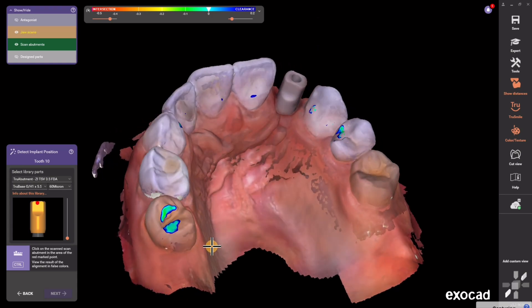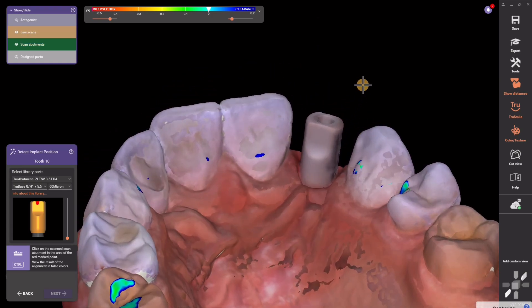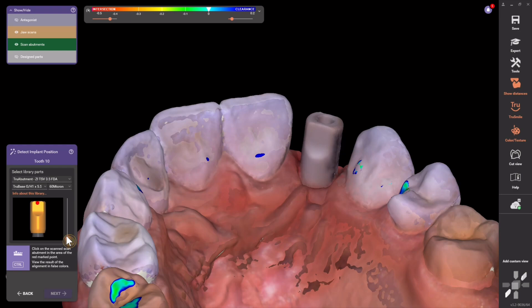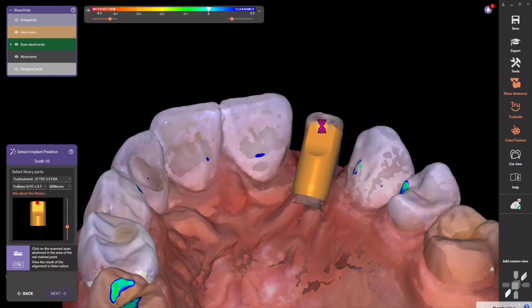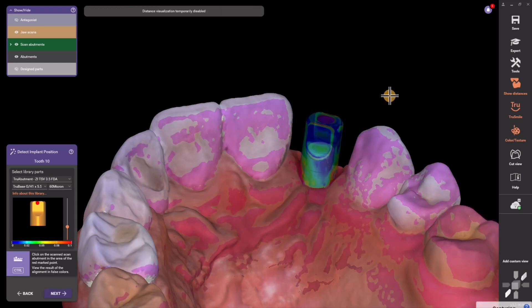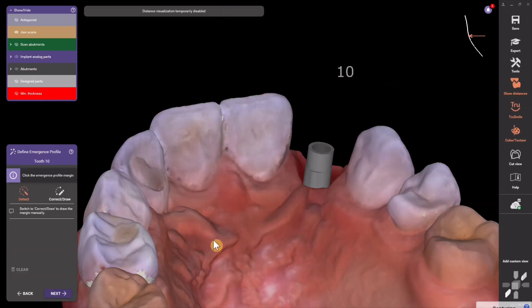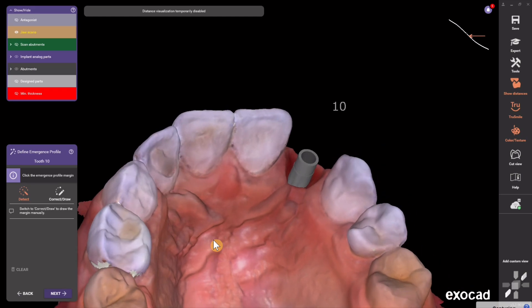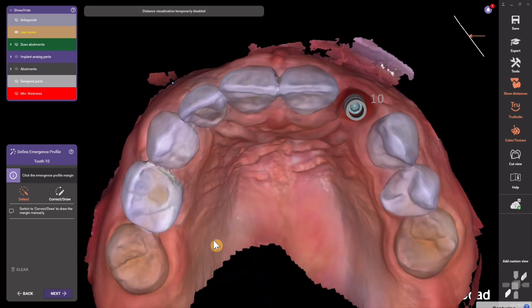Then I trim the virtual scan body there on the left to make it match the amount that's sticking out of the tissue. I drag that little slider up about a few millimeters to trim it. I click that little button there and it uses iterative closest point best fit algorithm matching with a color heat map for accuracy, and then we're off to the next stage.